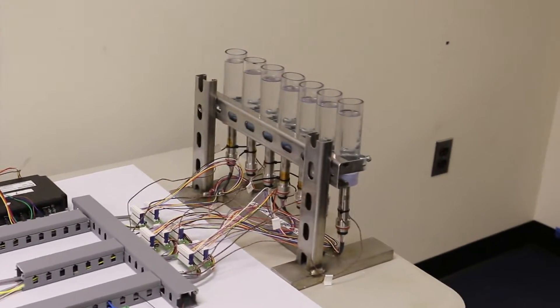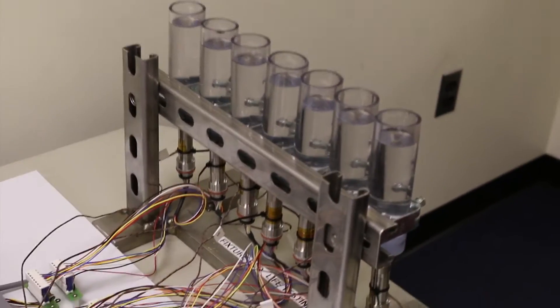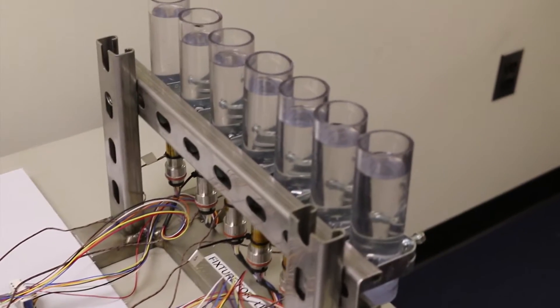Today I'll be introducing you to a test bed for one of our motors. This particular test is meant to simulate the harsh environment that this motor encounters as an arthroscopic shaver.